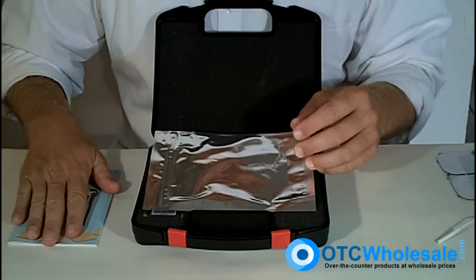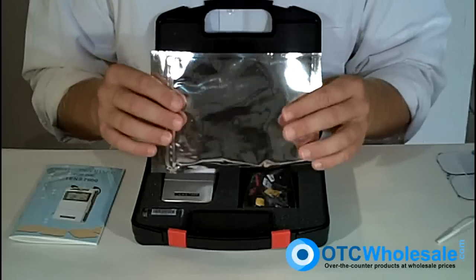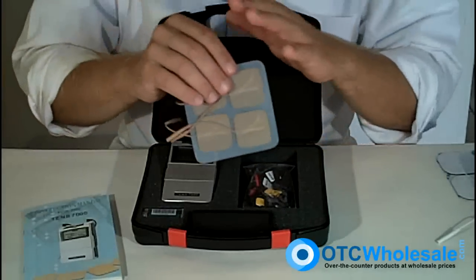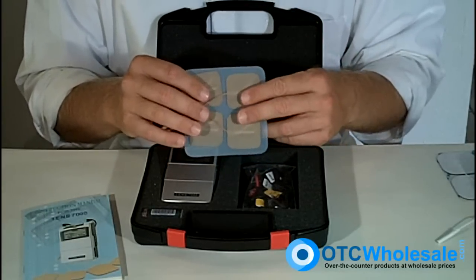It comes with a 40-page manual to tell you everything about the unit in plain English — an excellent manual. It also comes with a set of four electrodes. These electrodes are economy electrodes, like every other unit on the market — they all ship with an economy carbon electrode, 1.75 by 1.75.